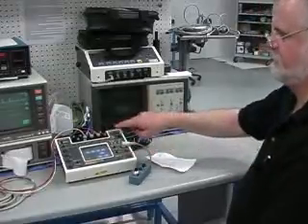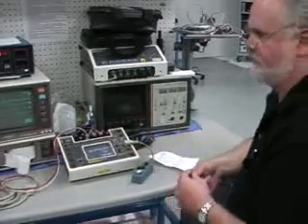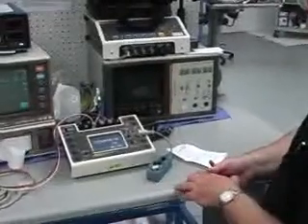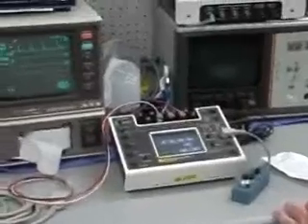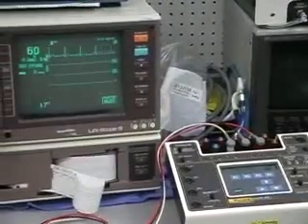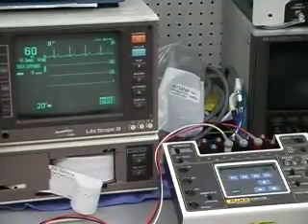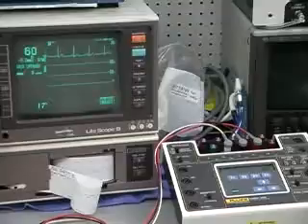Let's hook this up to the med tester also and have it run through its paces. It'd be nice to take one of these benches, or both of the benches, and set it up where the procedures and protocols are all built into the med tester. If you want to test something, you just type in a control code and it goes out and controls the piece of equipment that you need to get the work done. So I'd like to work with you to make that happen. High productivity.